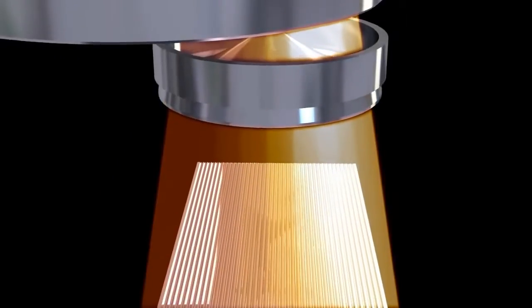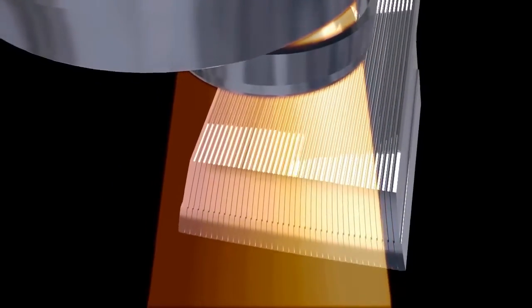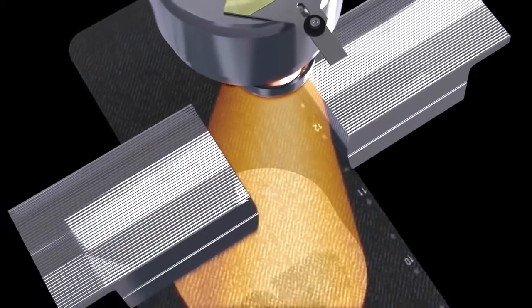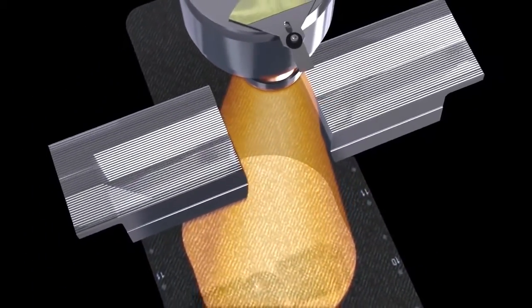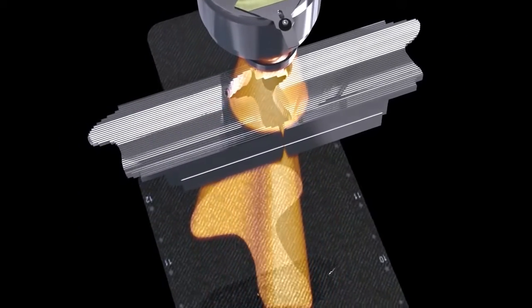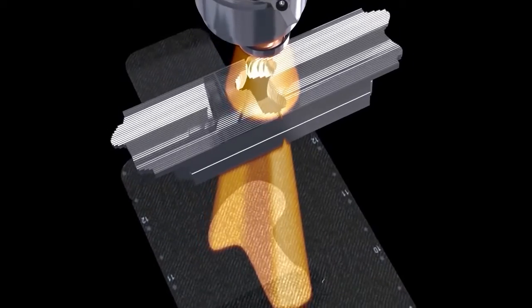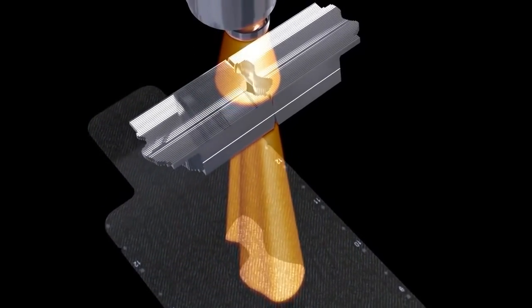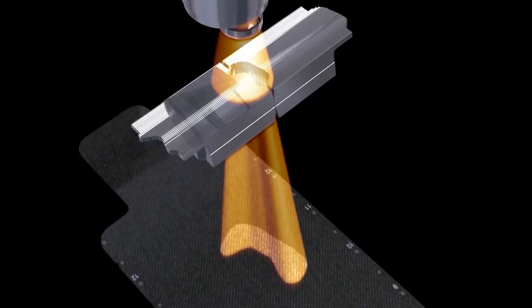The x-ray beam is almost ready to treat the patient. Before that, further beam shaping is required to ensure that the shape of the delivered x-ray beam matches the shape of the tumor. This is done using a multi-leaf collimator, a number of fine tungsten leaves which move independently of one another and can create a variety of complex treatment shapes.